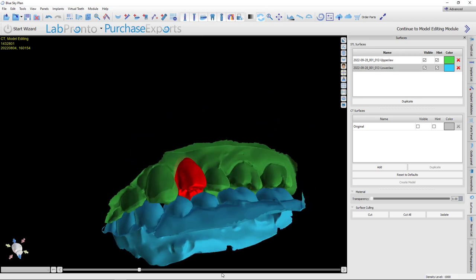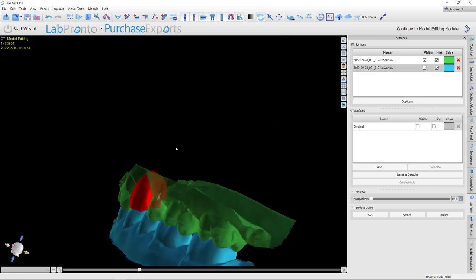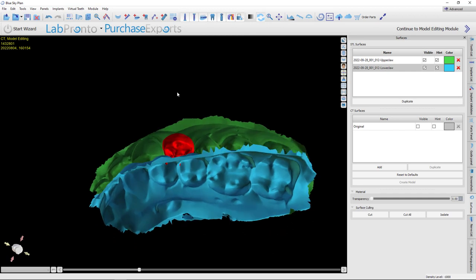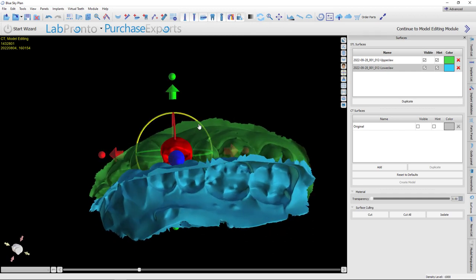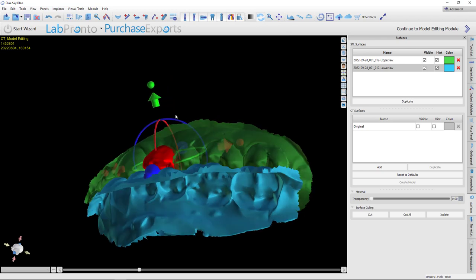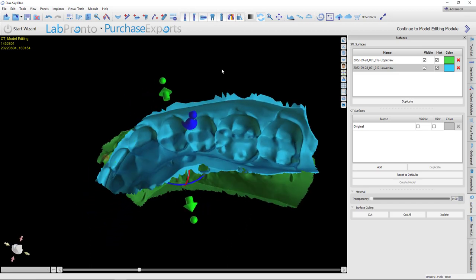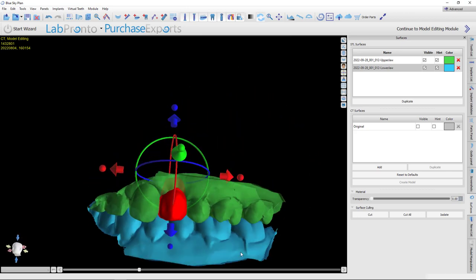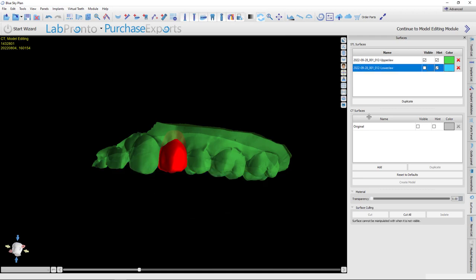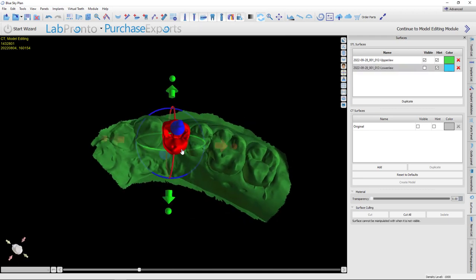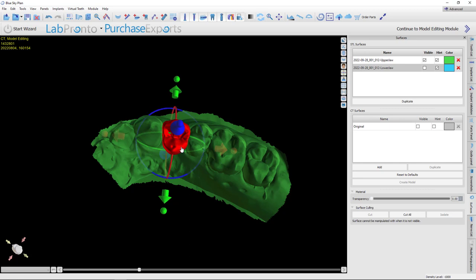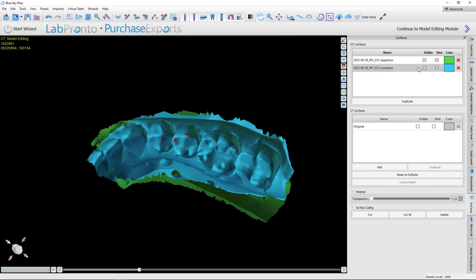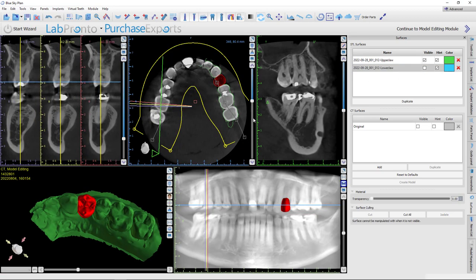So for my purposes, this is pretty darn good. If I look here, that's got decent occlusion. I don't really care if it's an absolutely perfect occlusion for a single tooth implant. Now, if this was for 789, maybe I would be a little more particular on that. But here, I'm not too worried about it. And then I could actually scoot it up until I just see that tooth starting to impinge. That way I know it's roughly in occlusion. OK. So that is my wax up, let's say. Looks like it could use just a bit of a twist there. Yeah. I like that a little bit better. And I've still got good occlusion. OK. So with that done, now we can place an implant.